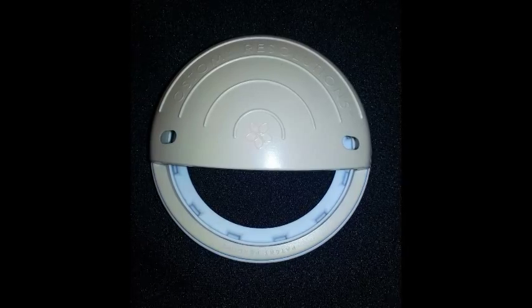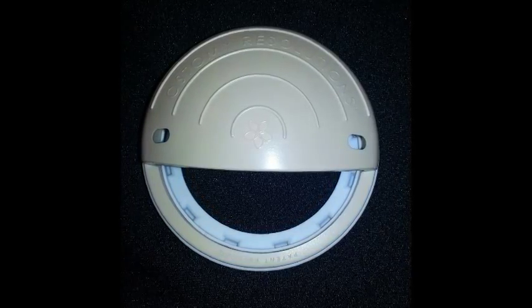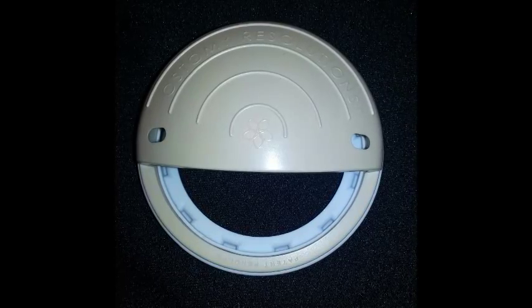A quick list of features include a round design allowing comfort in moving and bending.